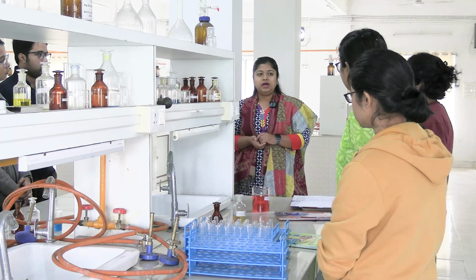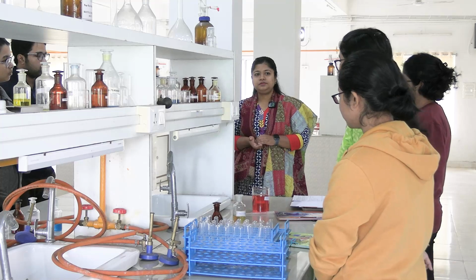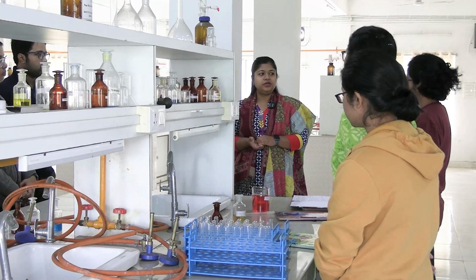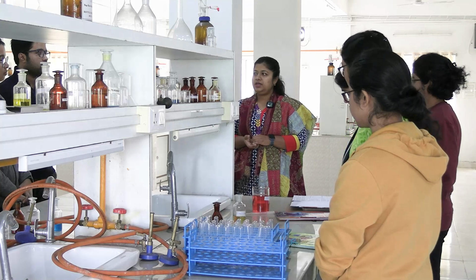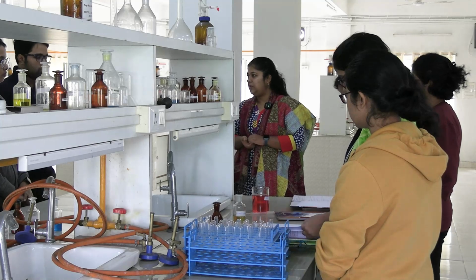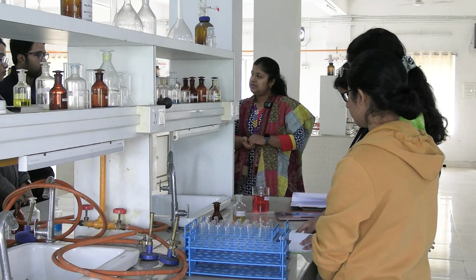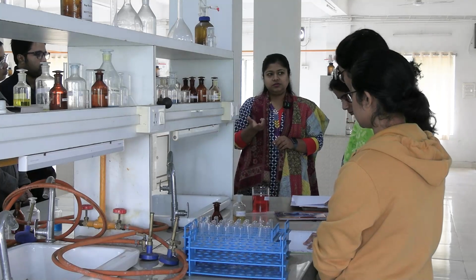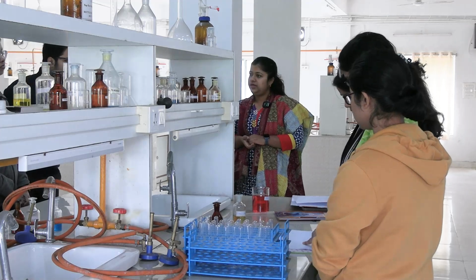So can you name other tests for protein detection other than heat acetic acid? The sulfosalicylic acid test was done, wasn't it? Where we add sulfosalicylic acid drops to the sample and get a coagulum at the bottom, with a cloudy appearance. Apart from that, there is Heller's nitric acid test. The same, concentrated nitric acid, if we add it to the sample, the concentrated strong acid will lead to coagulation or denaturation of protein structures, okay.